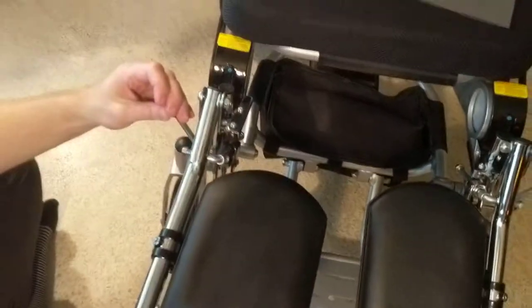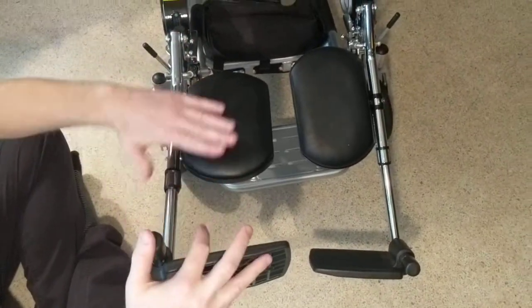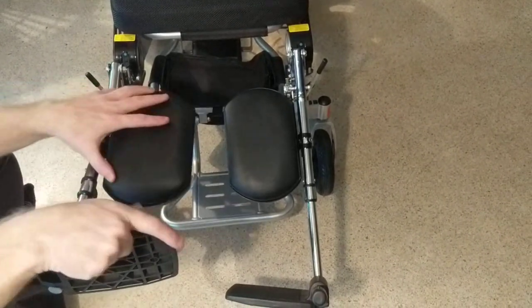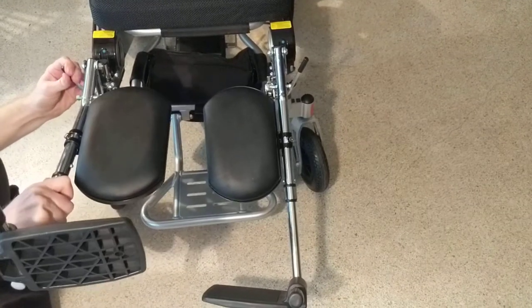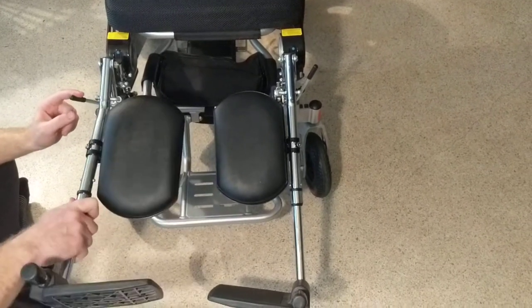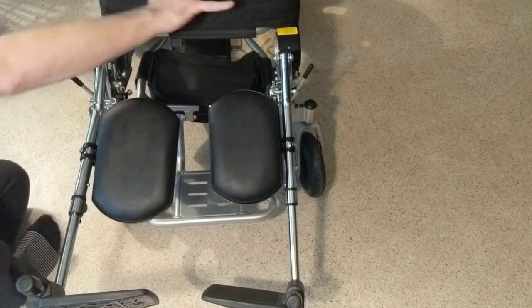This is an anti-rattle device, so it actually provides tightness to avoid these things rattling. You can see that this device will straighten out a lot more, and of course if we need to get this out of the way we absolutely can. If we pull here we can modify the device in different ways — dropping it down releases it and lets me adjust where I want the device.